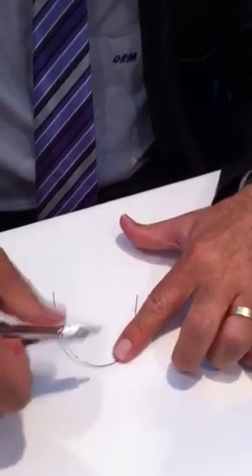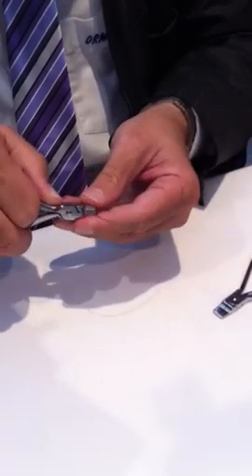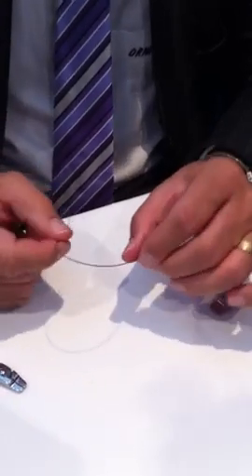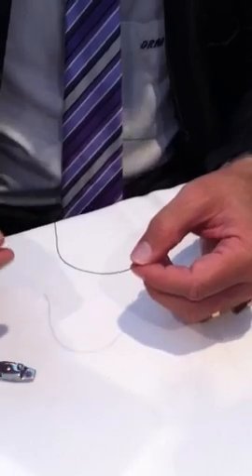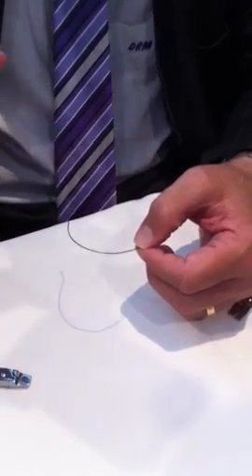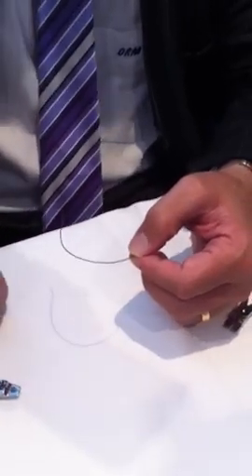Place the wire flat — you can see where it's riding up, normally where you've made the bend. I normally place torque in a 1925 wire. The ideal wire, if you want to add extra torque, will be a 1925 wire in a 022 slot, or a 1725 wire in a 018 slot.